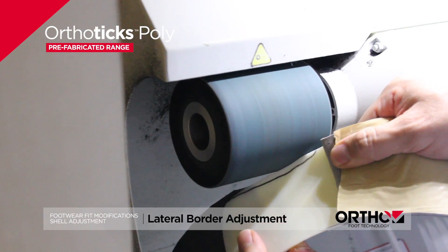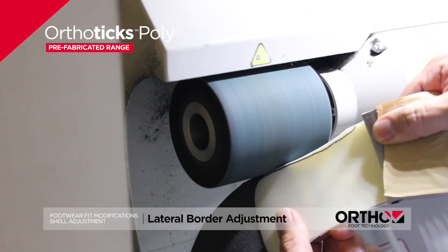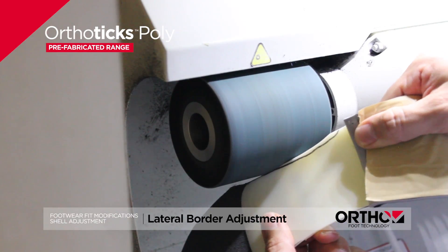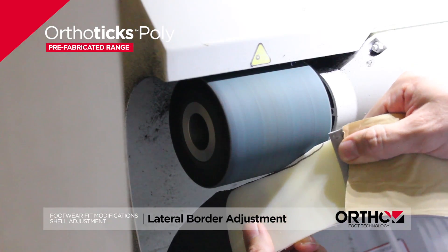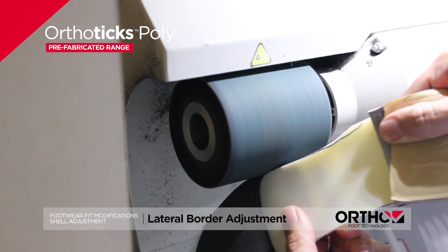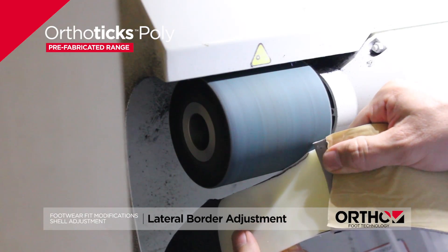Application: to accommodate a range of footwear options, including narrow footwear, hard to fit footwear, and specialty footwear including football boots, cycling cleats, and dress shoes.